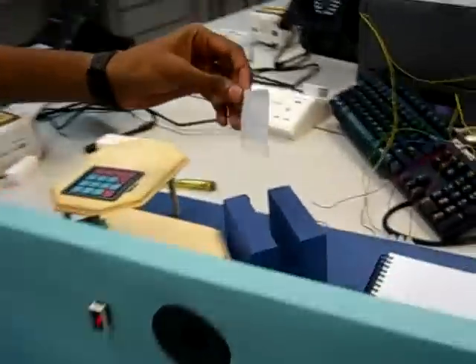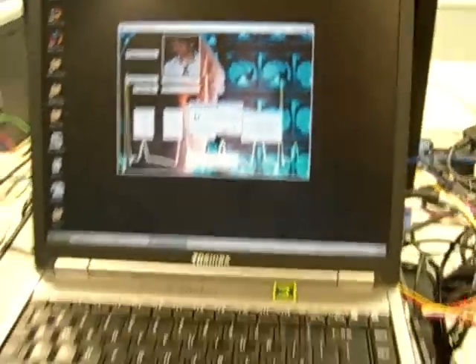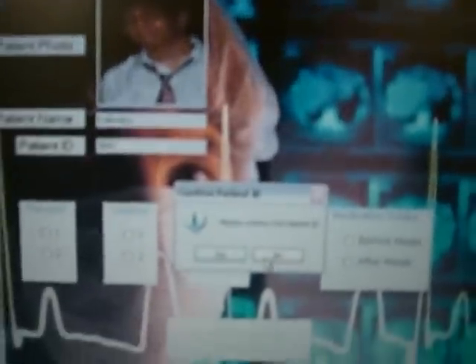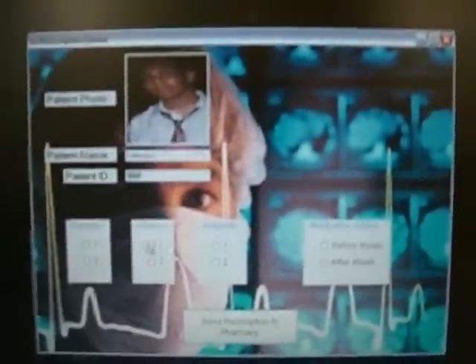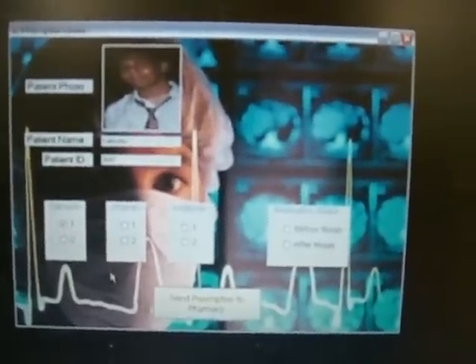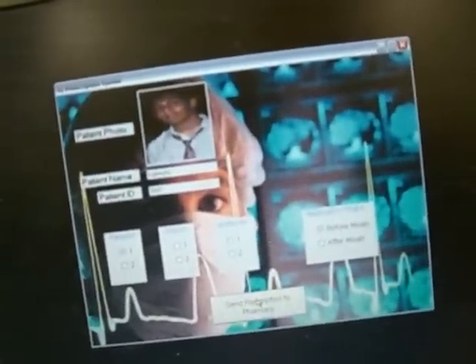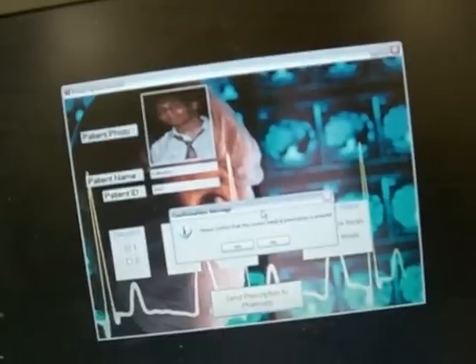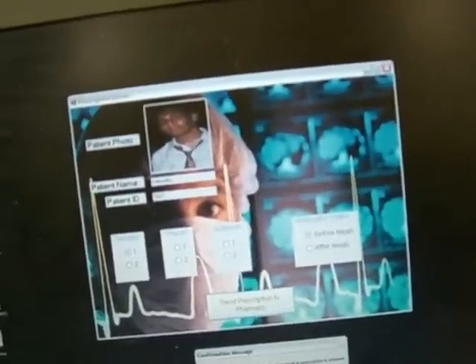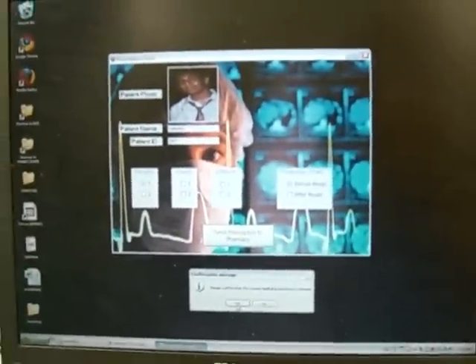Let's try how the medication prescription works. When the patient comes and taps his patient card, the name appears and his details are updated on the medication prescription system on the computer. The patient's name is Palimutu. We confirm the patient ID by clicking yes. The doctor prescribes Panadol. Without clicking 'after meal' or 'before meal,' it gives an invalid prescription error. We click 'before meal' and send the prescription to pharmacy, confirming with yes. The information is sent over to the pharmacy for dispensing.